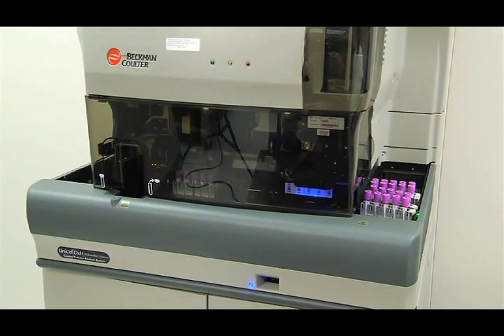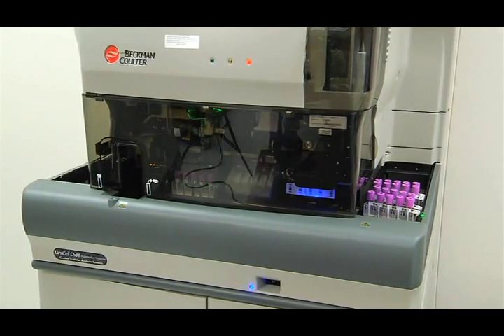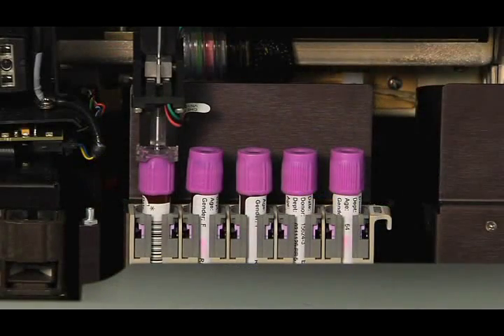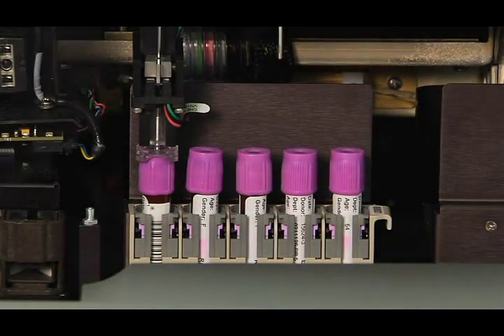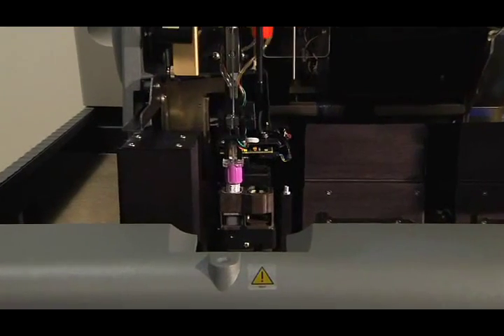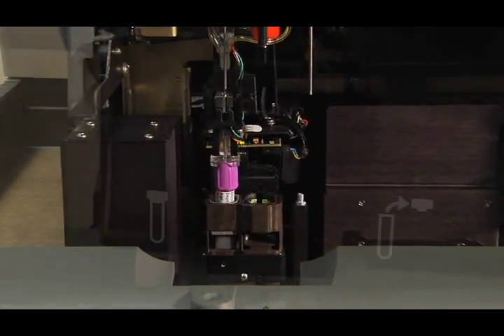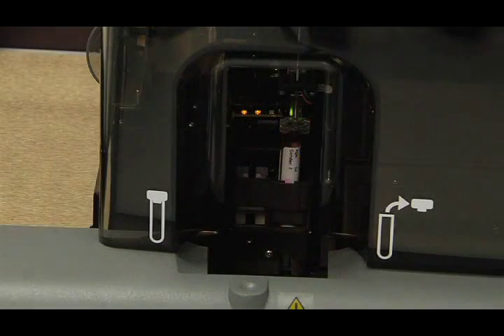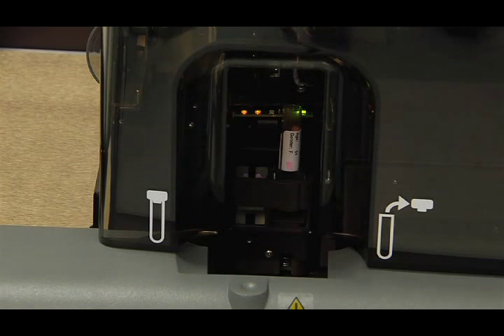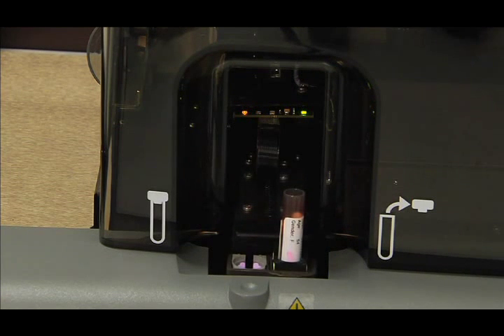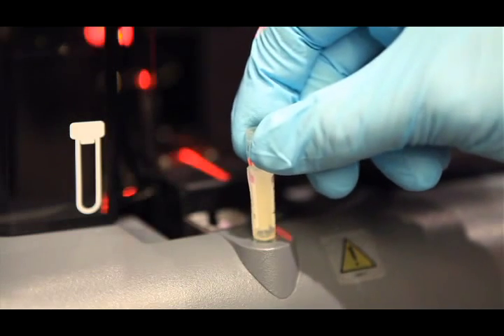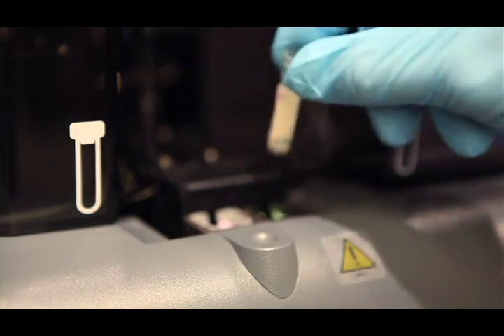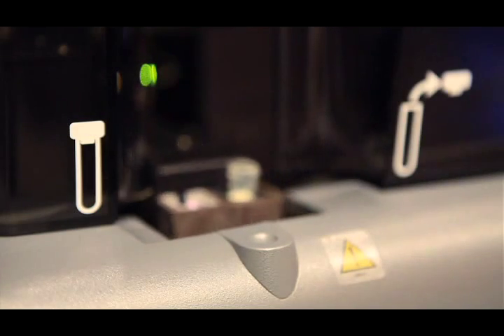The sample aspiration module aspirates from capped whole-blood specimen tubes via cassette or single-tube presentation or open vials single-tube presentation. This module also has a dedicated position for pediatric tubes. This is beneficial when working with small samples.